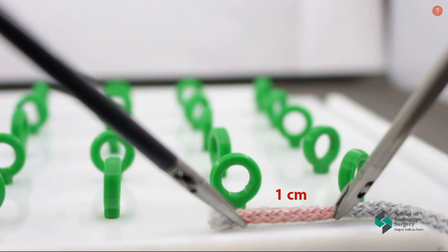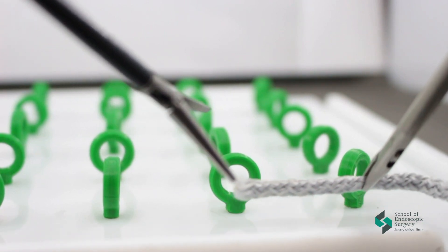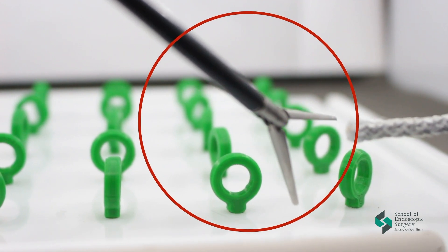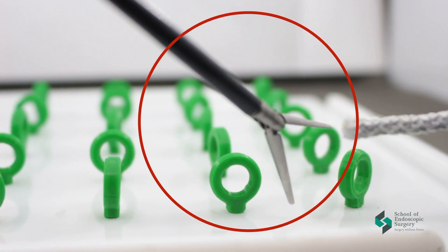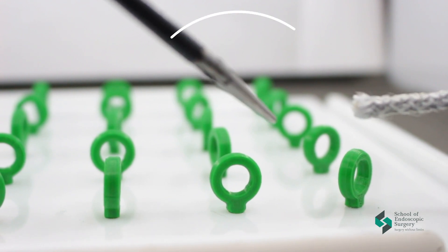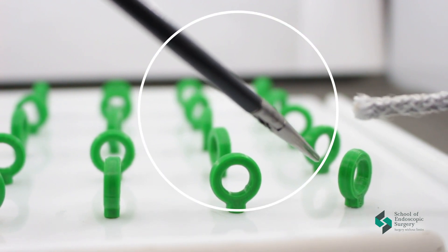Let's begin the exercise. Grab the tip indenting 1 cm. Before we bring the instrument up to grab our thread, don't forget that it must be closed. We only reveal it when we bring it to the goal.